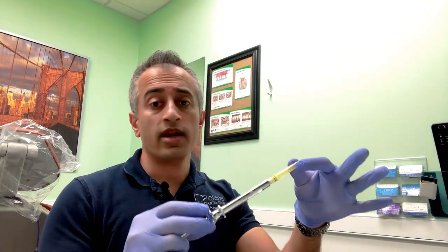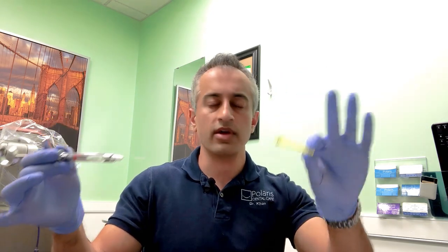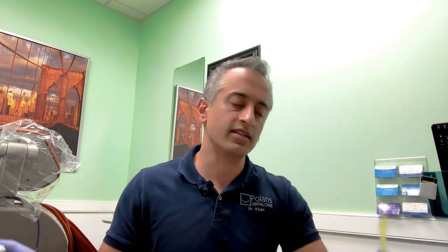Now let's talk about recapping a needle using the scoop and cap method. Let me show you what never to do: never ever take your needle cap and needle and try to cap it this way. Don't do that. You will stab yourself—you might not stab yourself every time, but eventually you're going to do it. Never ever do that.